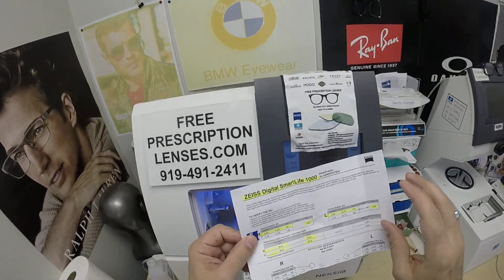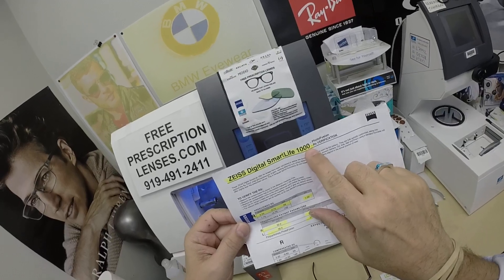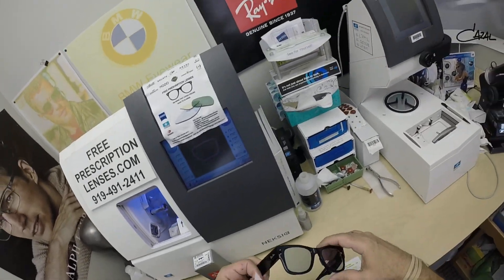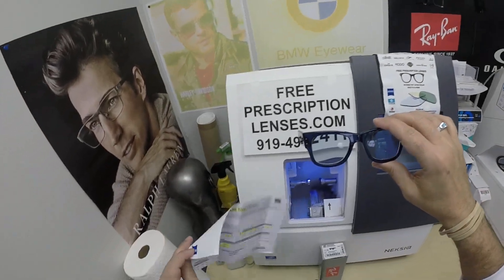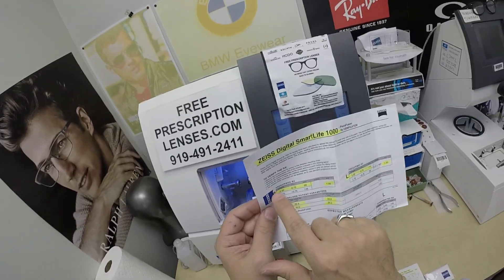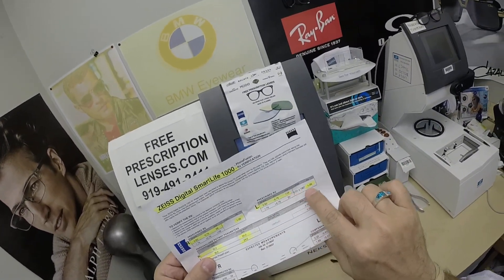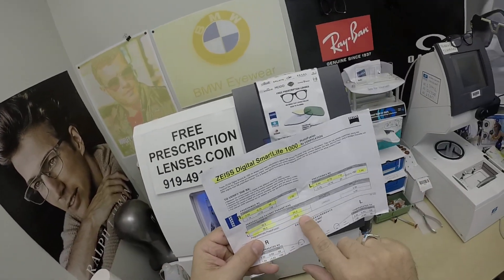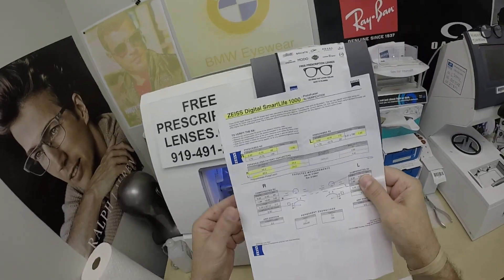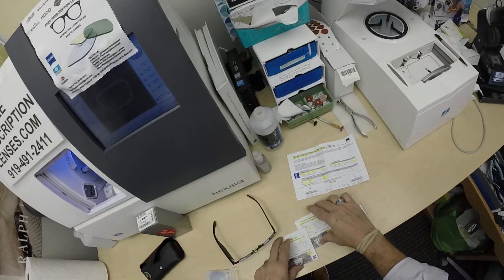He got the Zeiss Smart Life DigiBoost, which has a little bit of extra magnification of plus one at the bottom. Not quite a full-fledged progressive — this is almost a hybrid lens, halfway between single vision and progressive. I've highlighted the prescription for his right eye, the extra plus power, same for the left — that little digital boost at the bottom — along with pupillary distance and optical center height. Because it's from Zeiss, you get all the digital compensation with that for your own medical records.